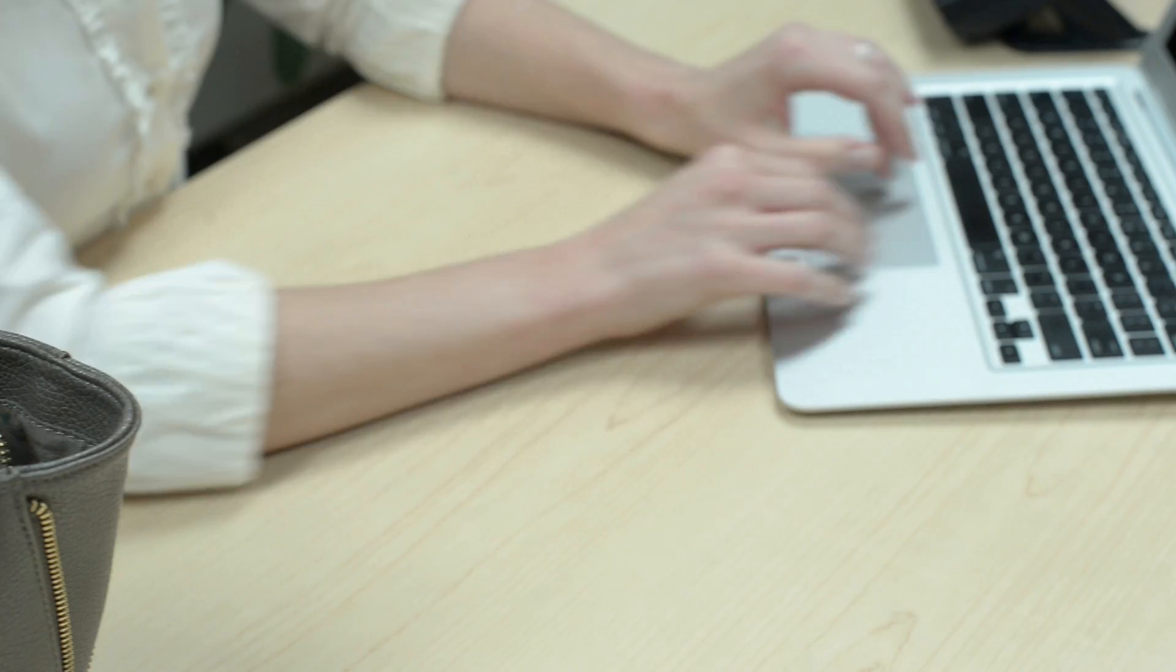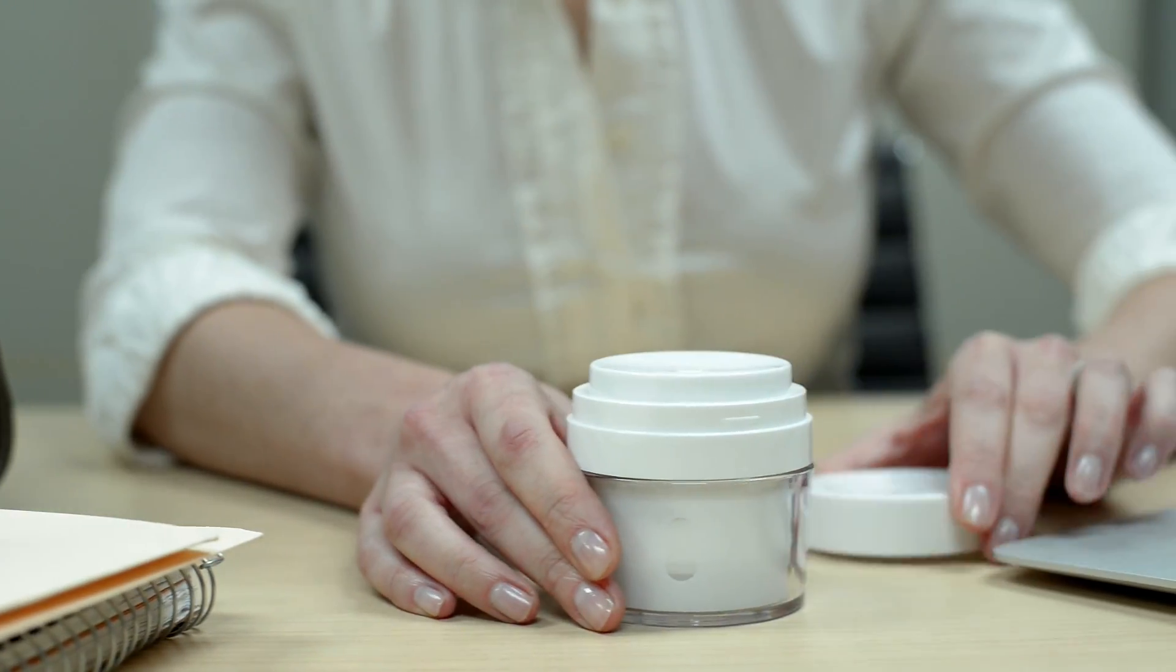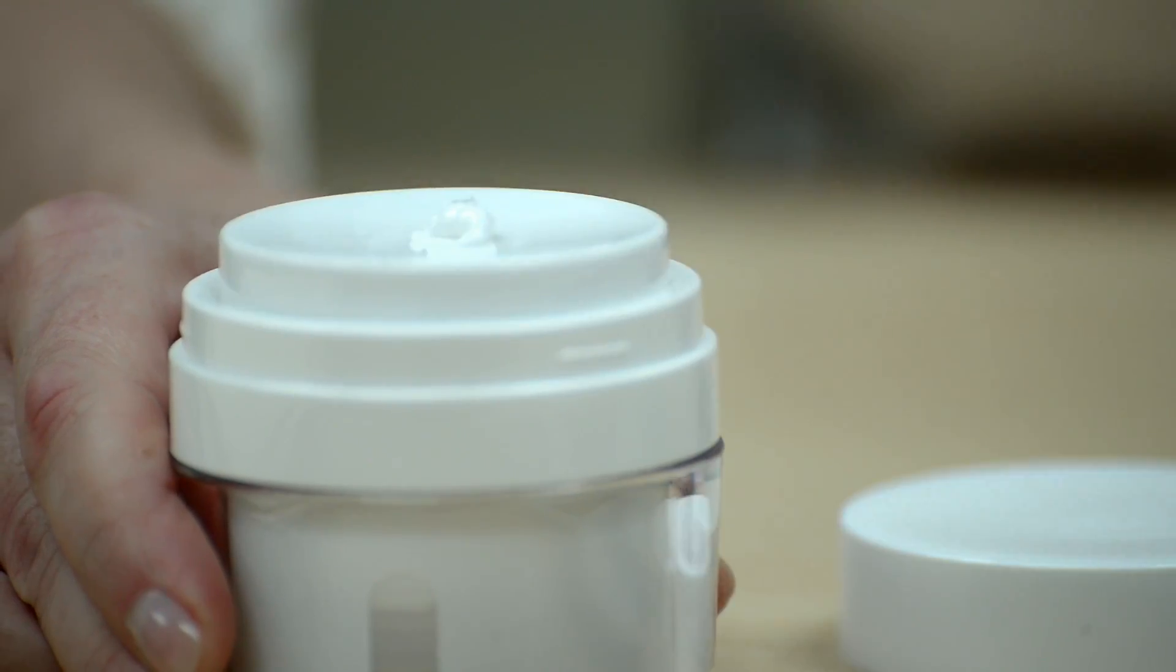The diverse selection of MD dispensers can be conveniently carried in a bag or purse so that your patients can easily and discreetly apply their topical preparation as needed.